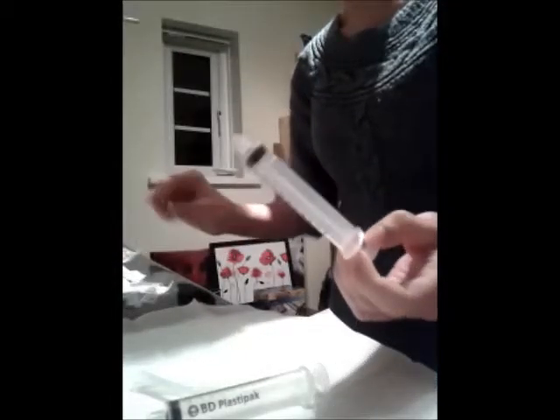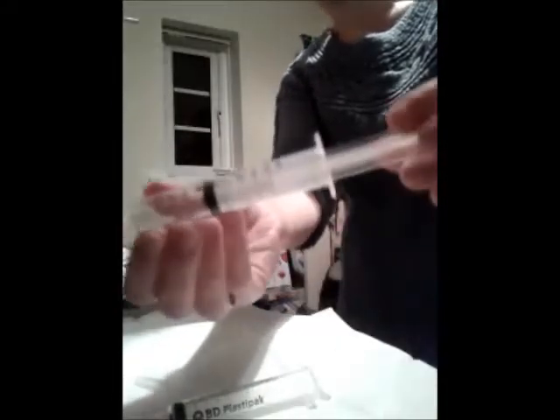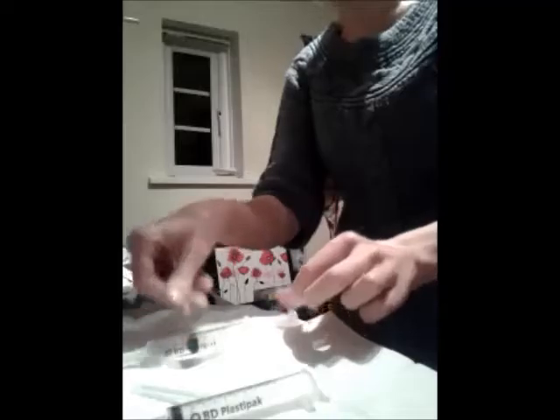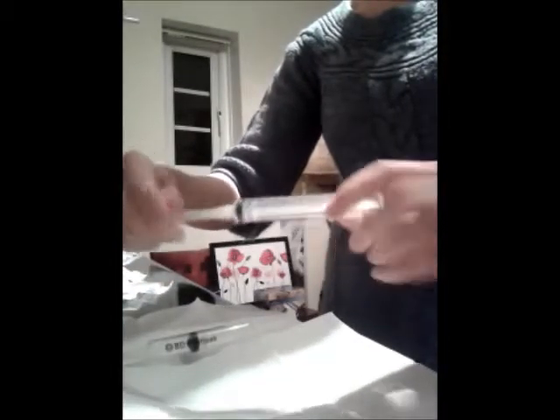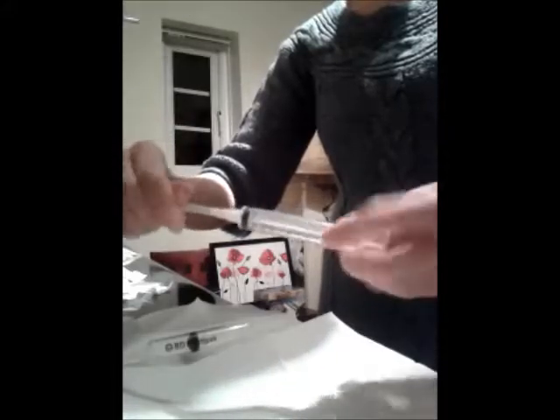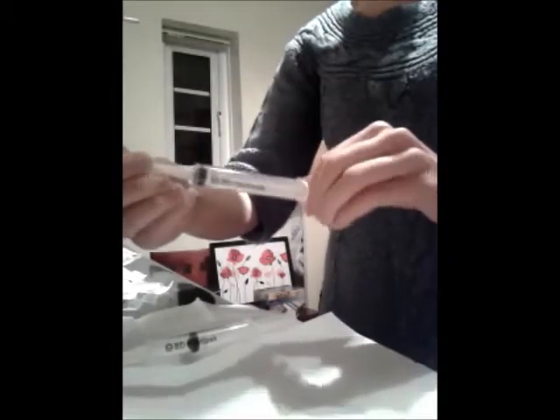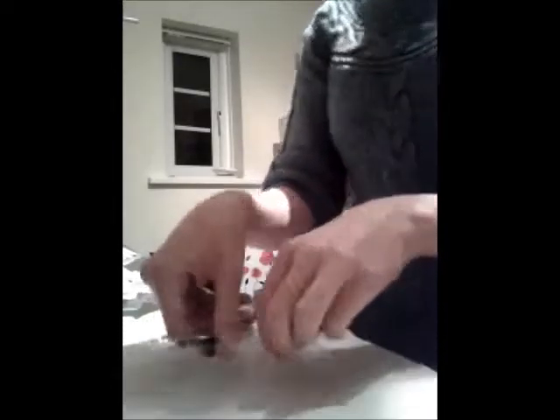These are Microlance 3s, used to get the medication out of the vials. They are always attached to these plastic 10ml syringes. So I'll just open those up and pop them down, then attach the needles to the syringes and pull 5ml of air in. That's what that bit looks like. I'll now repeat the process — they're just a quick and simple twist on, twist off, so it's really easy to change to the next set of needles. Again, pull in 5ml of air.